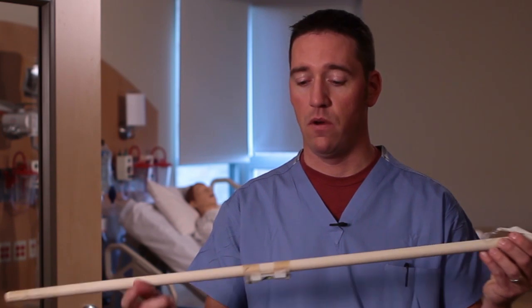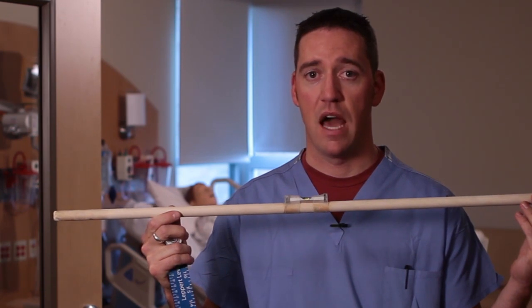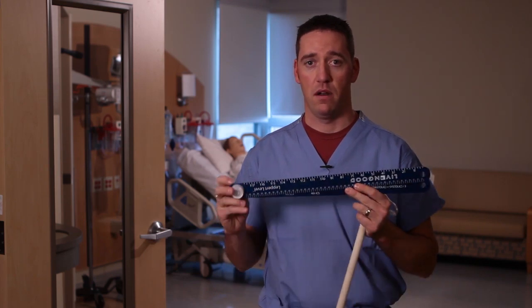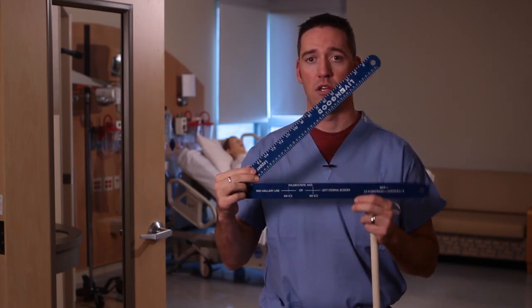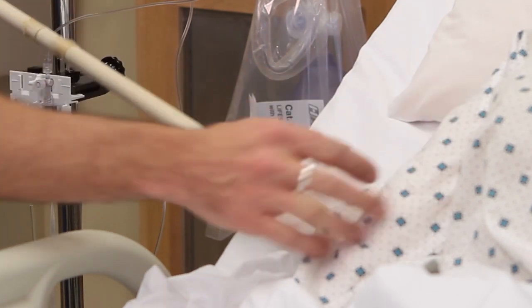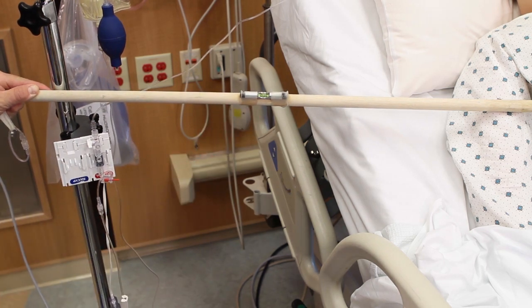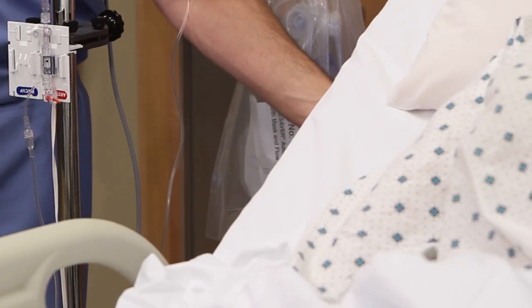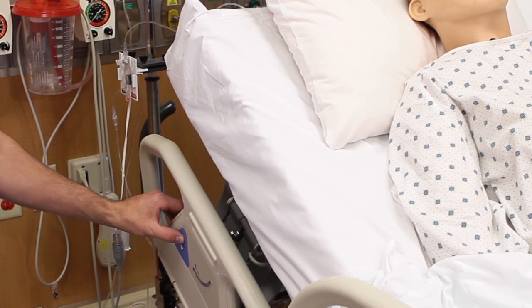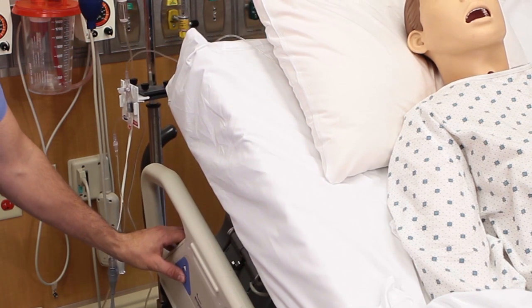For years, we've used what has been known as the stick, a simple device made from parts from a hardware store that is restricted to line of sight for leveling a transducer to your patient. The Leppert Level is an advancement upon a practice that has been tried and true, but also allows you to circumvent some of the inherent obstacles found in today's ICU. The stick worked for years and probably has the most tenure in your current ICU. It worked because it was simple to use and accurate, but the stick was rendered obsolete when the majority of the transducer holders were moved from a freestanding IV pole to a bed-mounted IV pole.